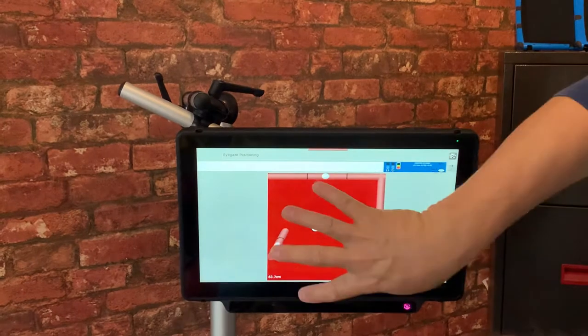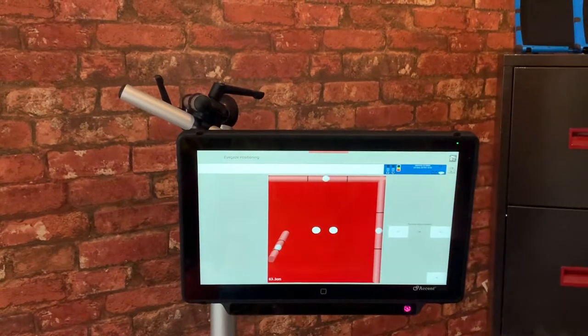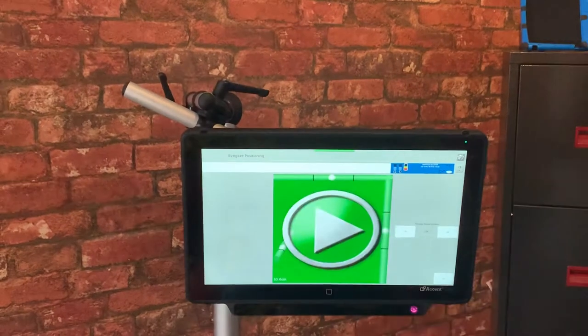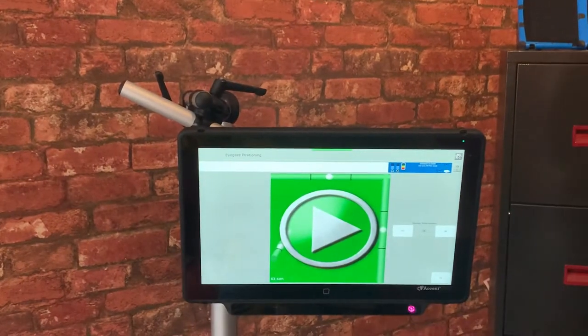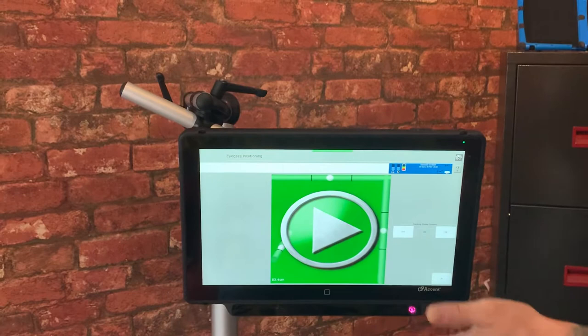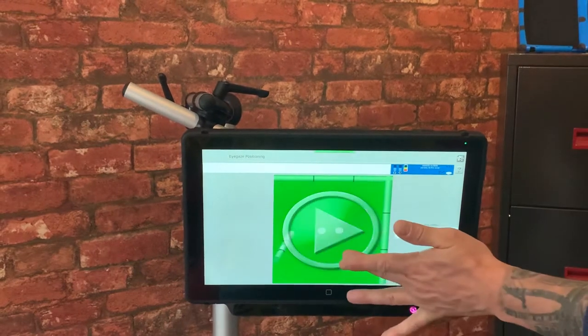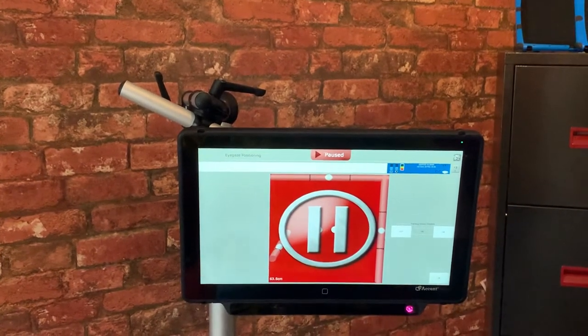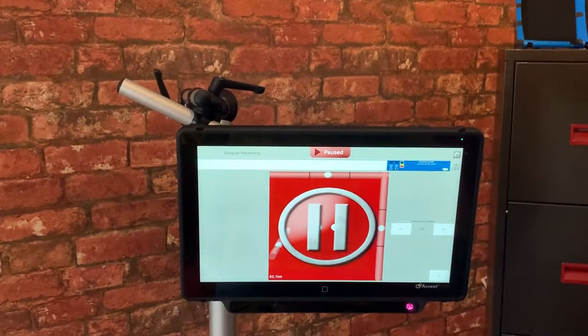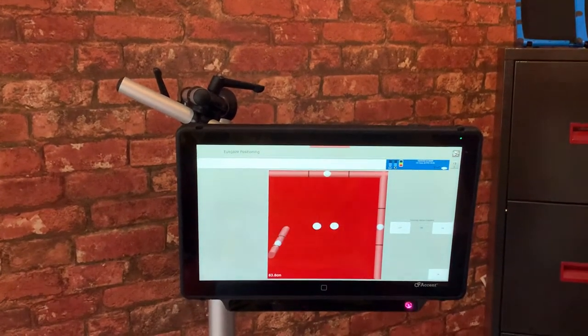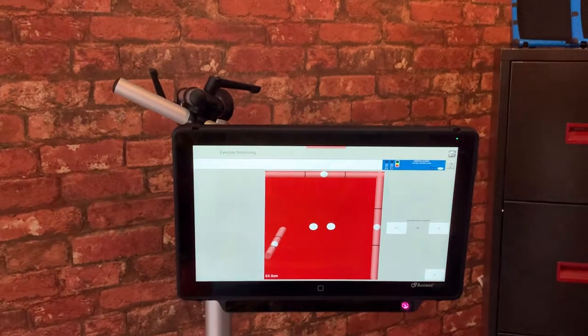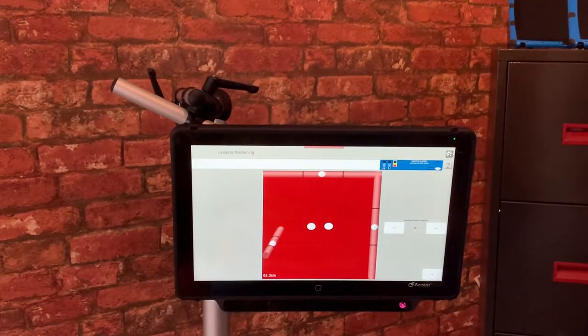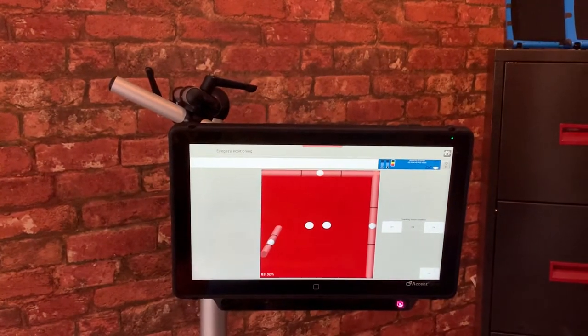As I bring that client closer or make adjustments remember it will make adjustments here and here too. If your box isn't red like this and it may be green that's because you're active on the screen just tap it once and it will go red. So now I've set the device up it's in the perfect or the ideal position to calibrate for the client.